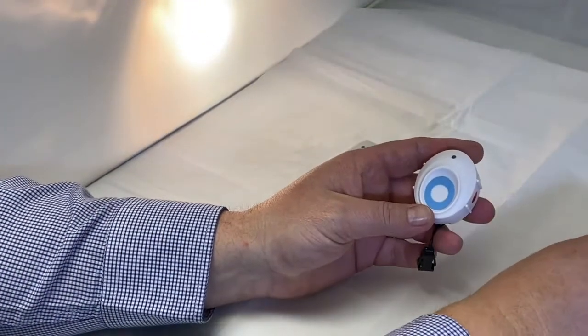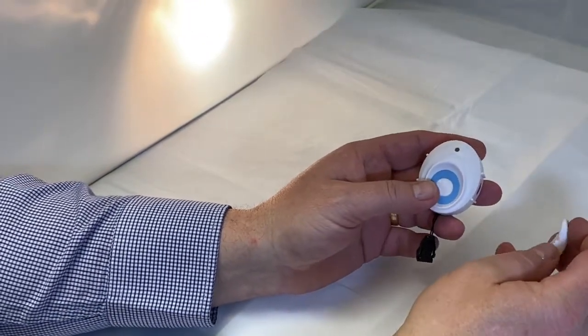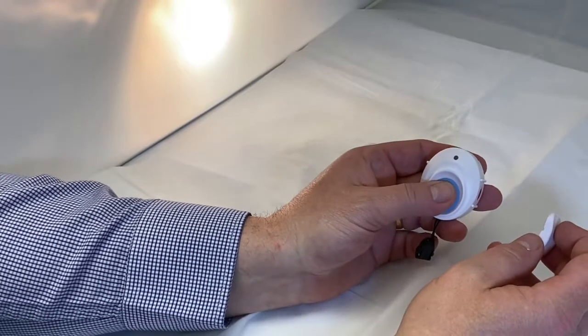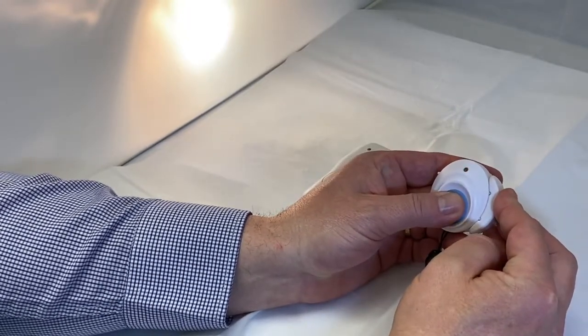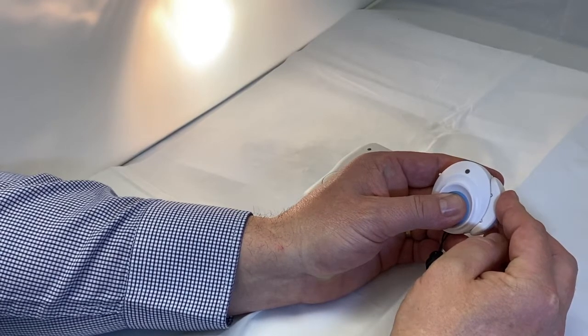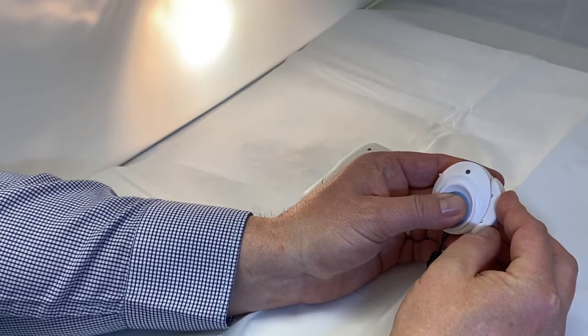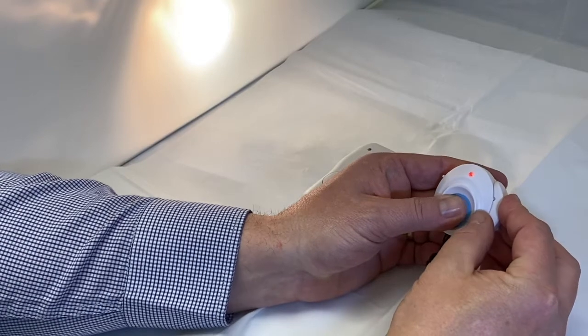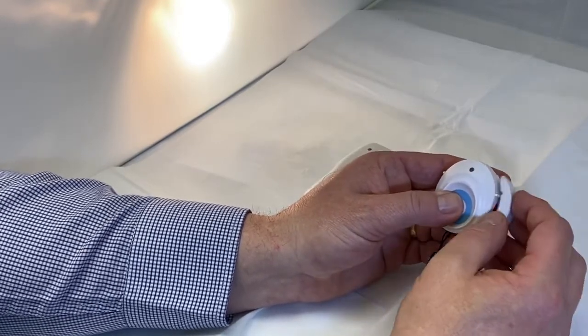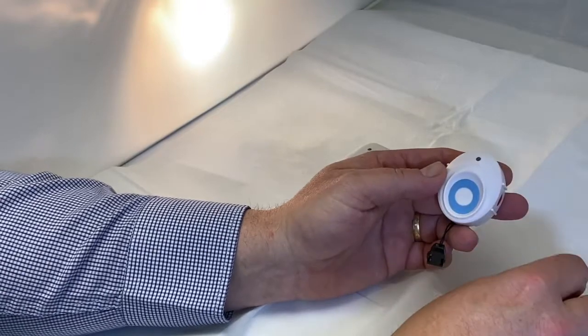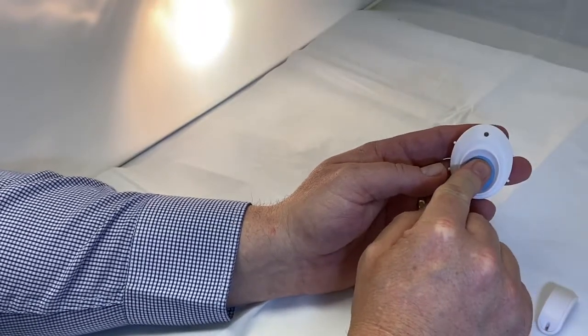To switch off the FA6, hold your finger over the button with magnet in place and wait on the solid red LED. Remove your finger, place it back on, remove magnet, place it back on, and now the device is switched off.